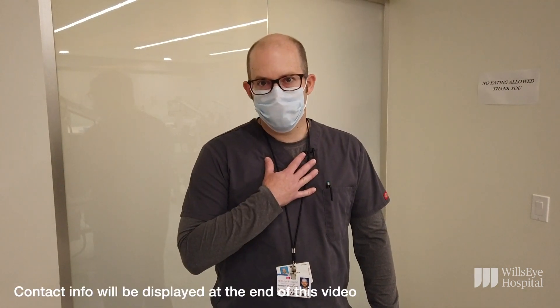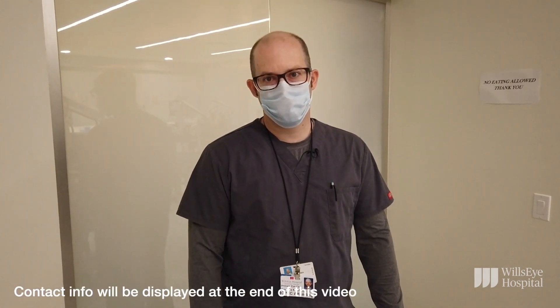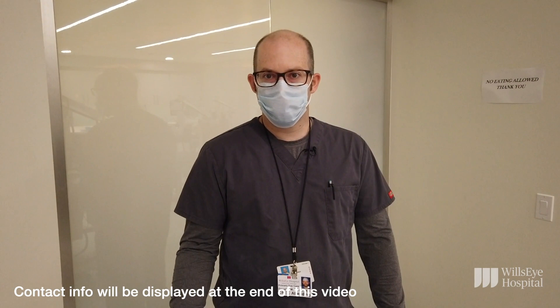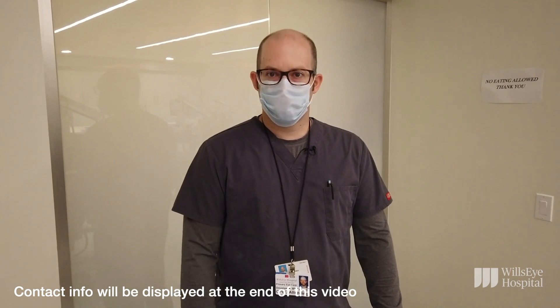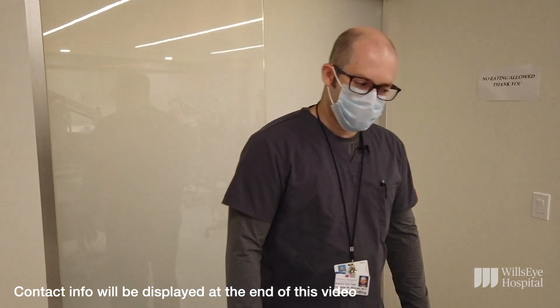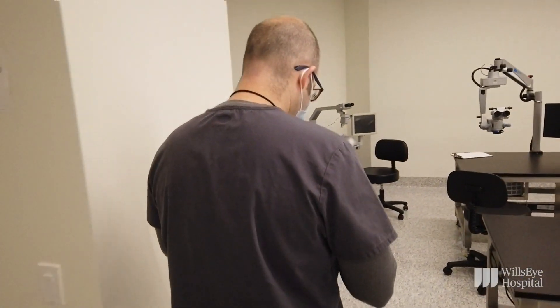If there are ever any questions, you can always contact myself — I'm Doug Wisner, I'm the director of the lab — or Marie Fiorillo, our lab manager. Now let's look at the simulators.